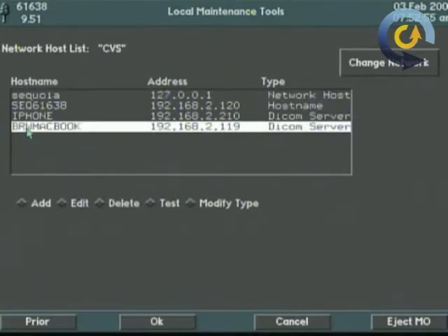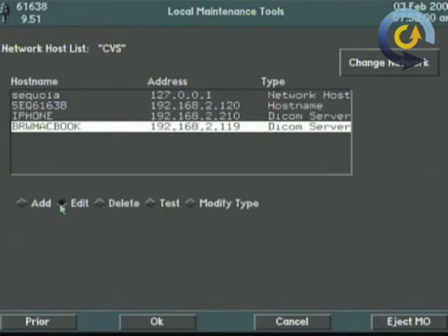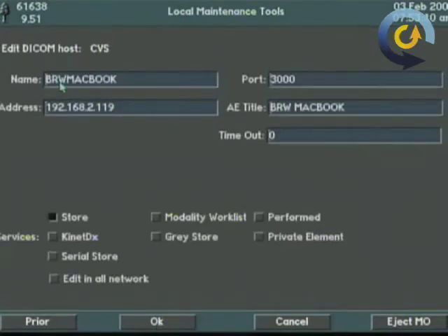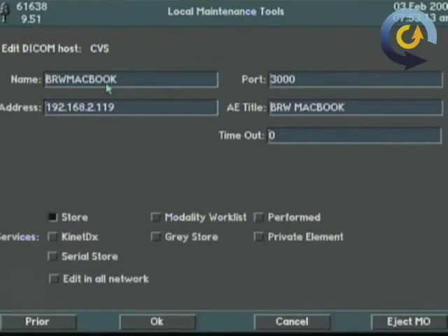We have two DICOM servers set up already and rather than adding one which we can do by checking the box to the left we'll do edit. Hit okay and again it will pull up the information for that server. This is our storage device so we've given it a name and this one is BRW MacBook. That's my laptop and I gave it that name to identify it.